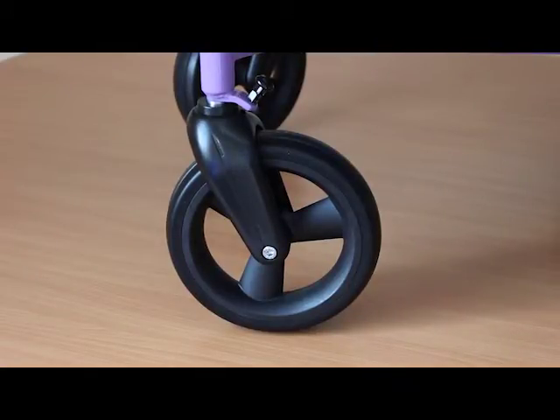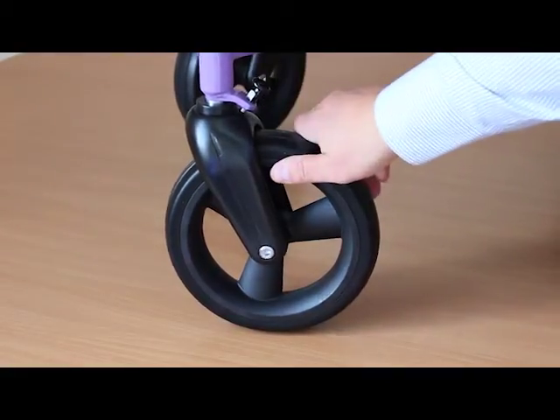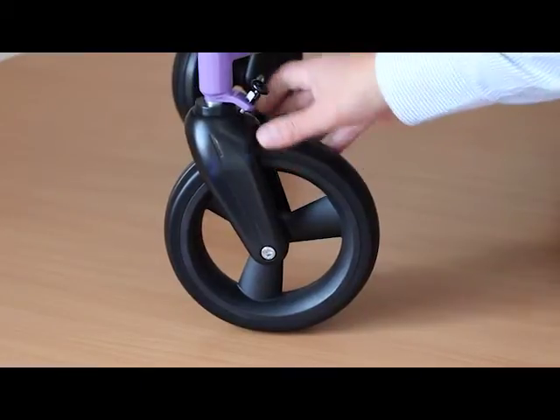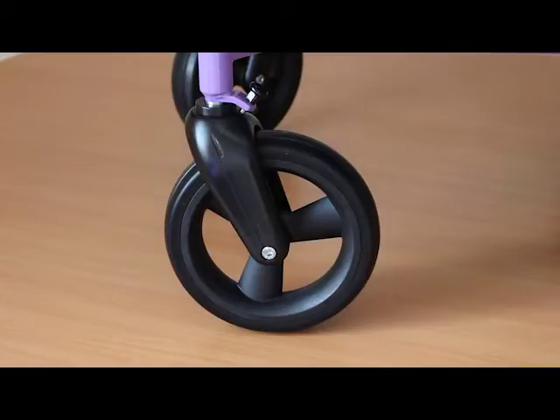The front casters have a locking mechanism, activated by pulling the pin out, letting it slide down, and locating it into the caster itself — this prevents the caster from moving. This is especially useful in a wheelchair accessible vehicle, stopping the caster from spinning out and jamming on the outside edges. It's also useful on public transport, acting as a sideways brake when there's no other securing method.